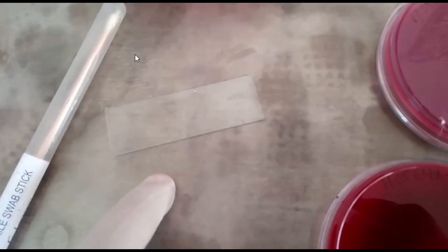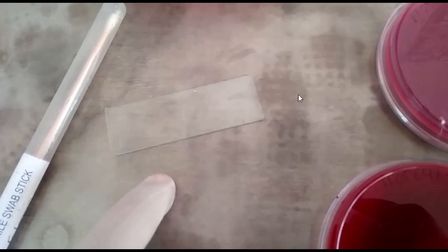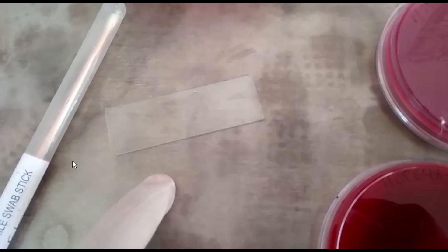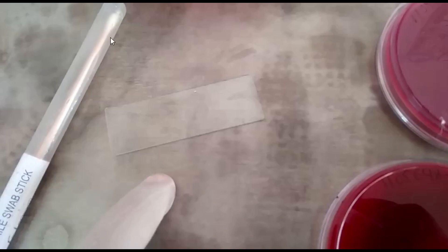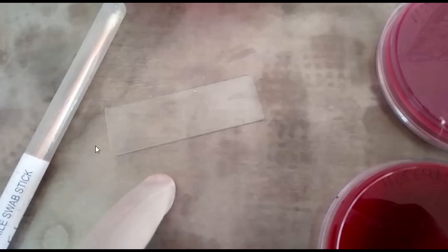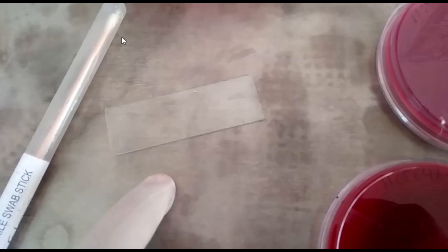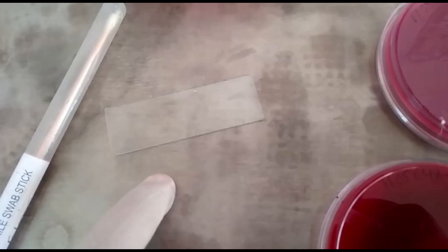Today we are concerned with gonorrhea and its causative agent isolation, that is Neisseria gonorrhoeae. Here we can see this urethral discharge swab and this smear for gram staining from the gynecological unit. This one is for gram staining and this one for culture and sensitivity.